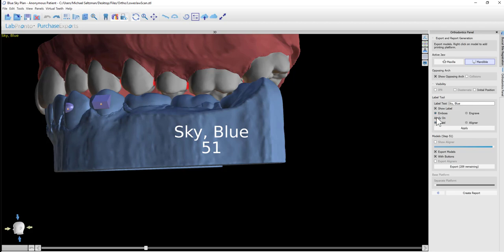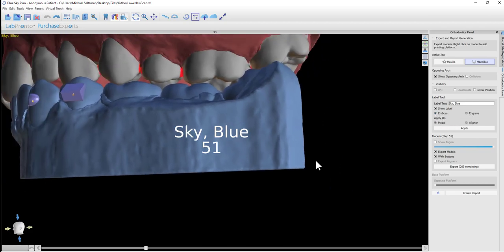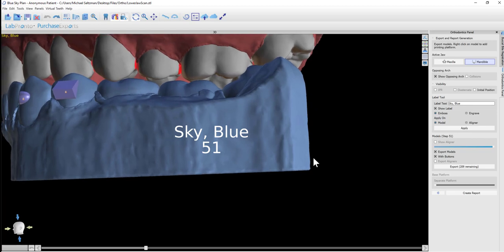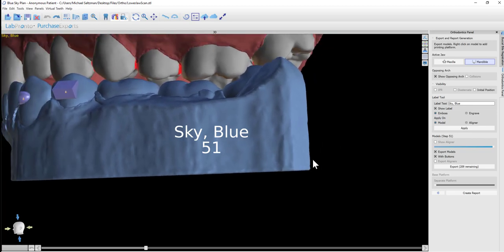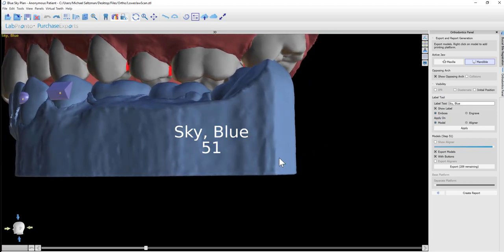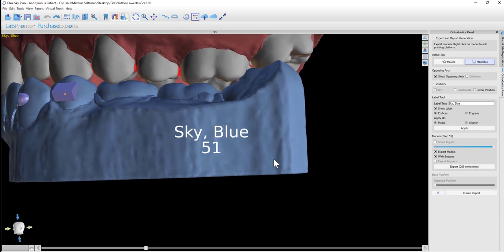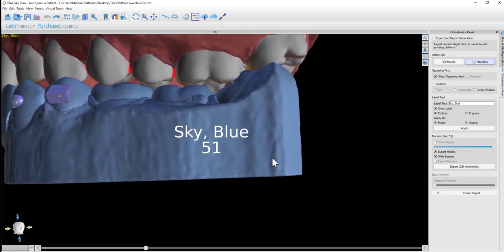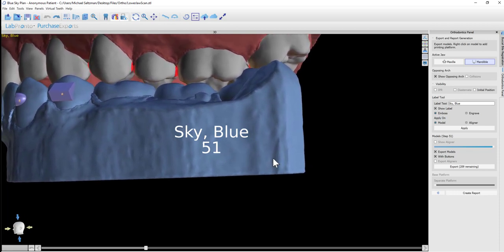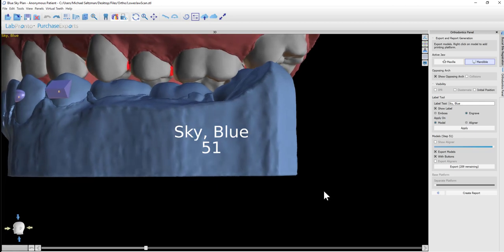Once we have the proper positioning, we could choose if we would like to emboss or engrave. We're able to zoom in and out using the right mouse button, rotate using our left mouse button, and as usual grab holding down the wheel of our mouse. Engrave is often recommended, as if it's small text it might be problematic when it comes out of the printer—it might not be legible.